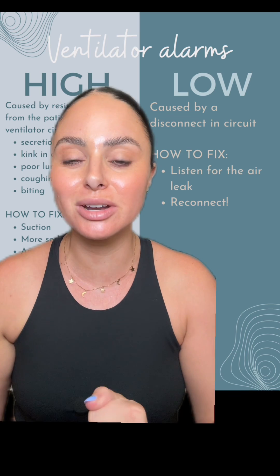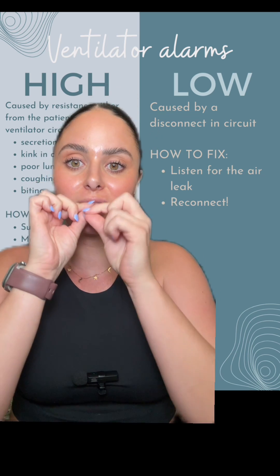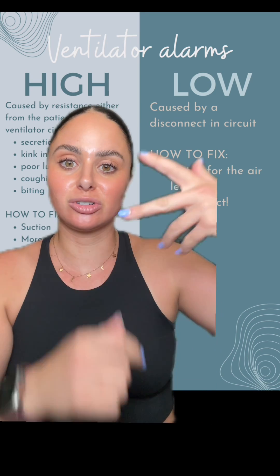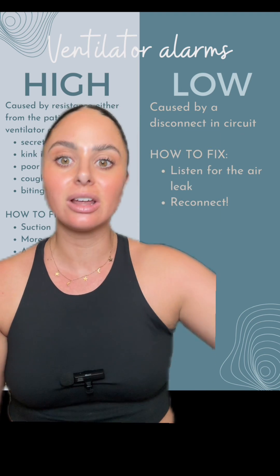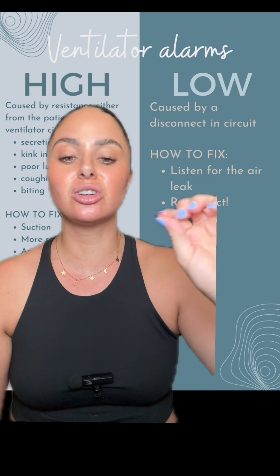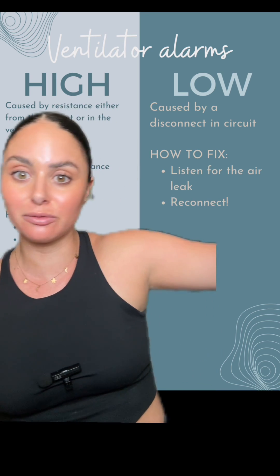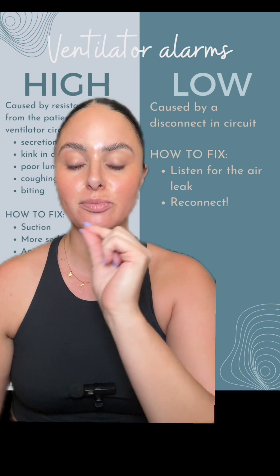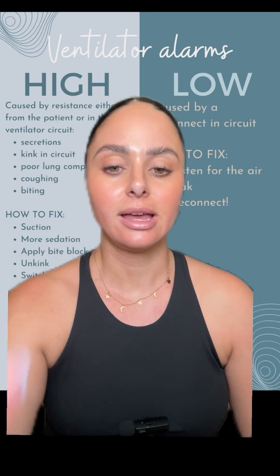There are a lot of parts on a ventilator that connect. You have your ET tube where the ventilator circuit connects, and there's usually blue and white or clear tubing connected from the ventilator to the ET tube — sometimes one of those can come off. Sometimes it's the filter at the ventilator. So backtrack, start at the patient, and work your way down the ventilator circuit to find what's disconnected.